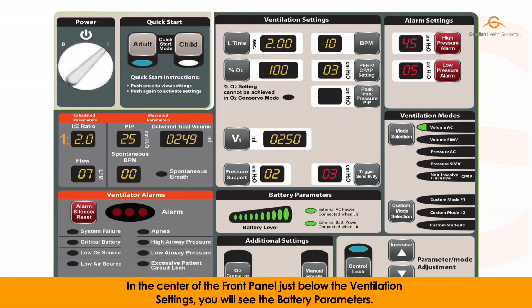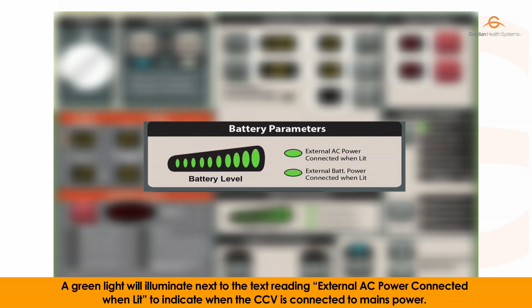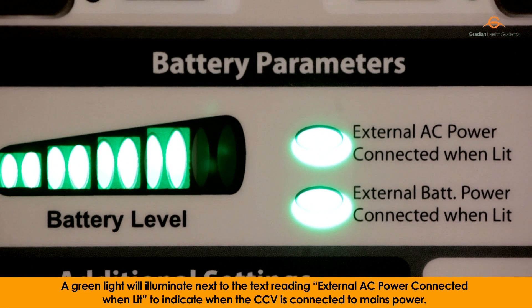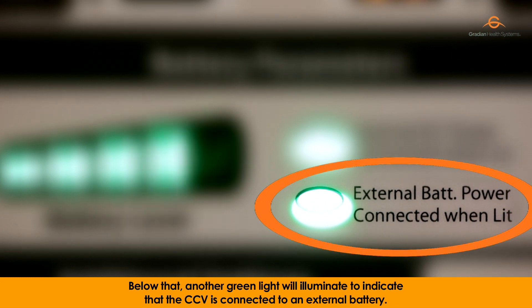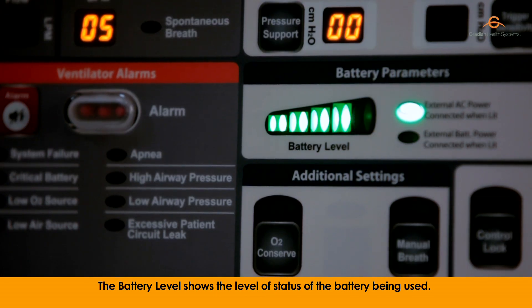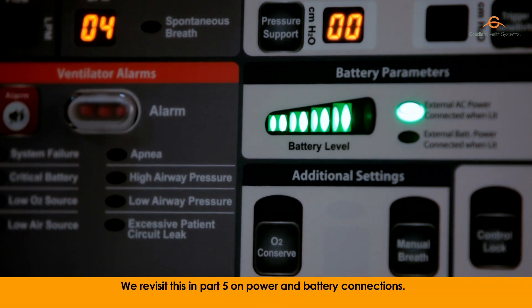In the center of the front panel, just below the ventilation settings, you will see the battery parameters. A green light will illuminate next to the text reading 'external AC power connected' to indicate when the CCV is connected to mains power. Below that, another green light will illuminate to indicate that the CCV is connected to an external battery. The battery level shows the status of the battery being used. When the battery is charging, the lights farthest to the right will blink on and off. We revisit this in part 5 on power and battery connections.